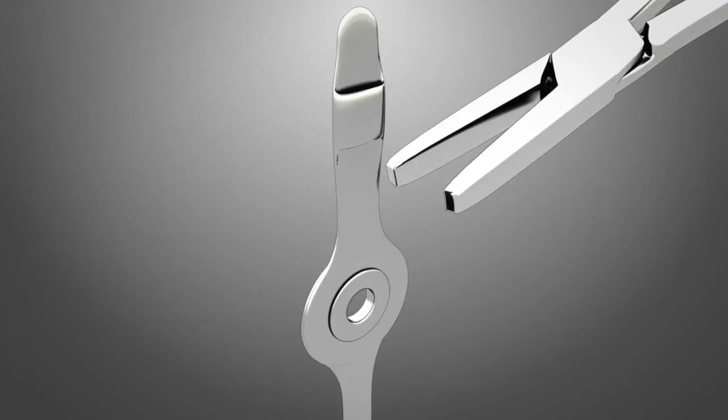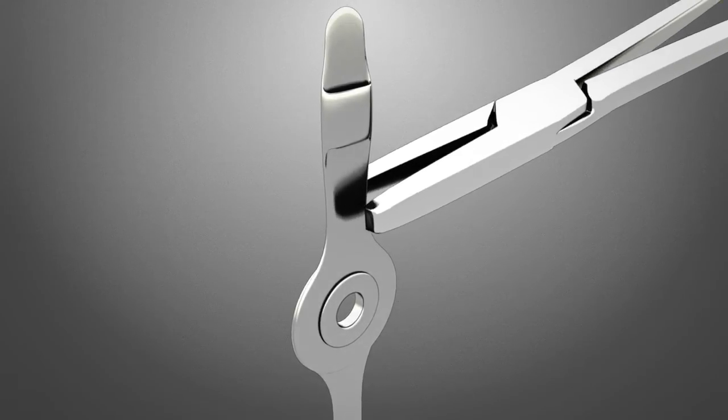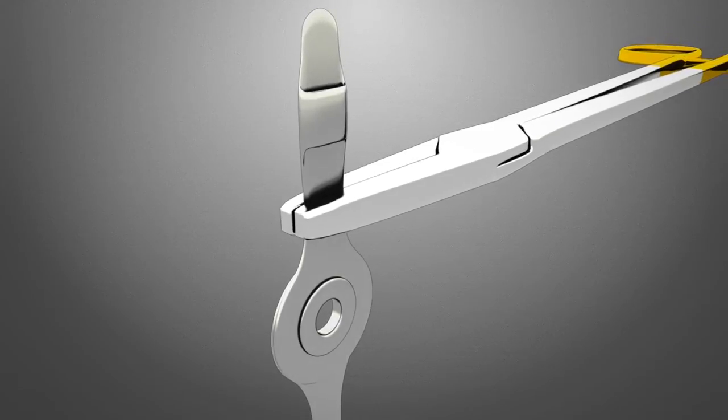A clamp may be placed on the strap between the round hub and security box in order to manage the loose end of the device.